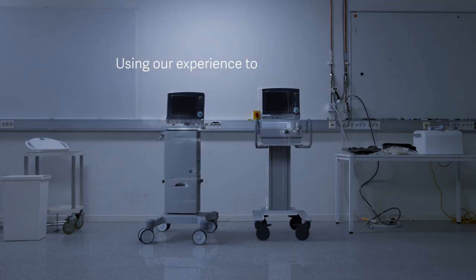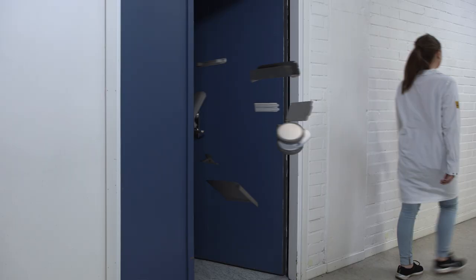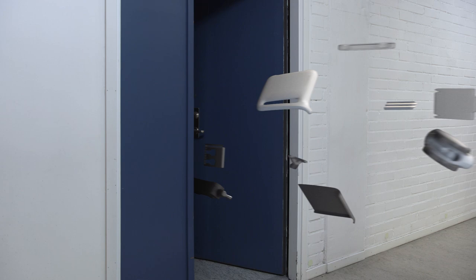For more than 50 years, we've worked closely with our customers to constantly rethink, refine, and redesign.